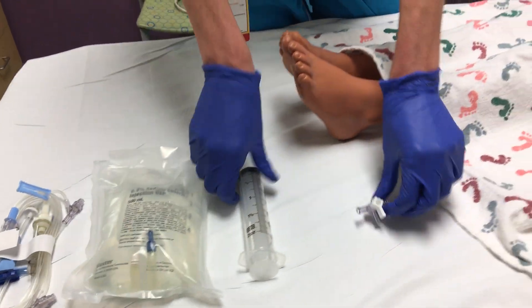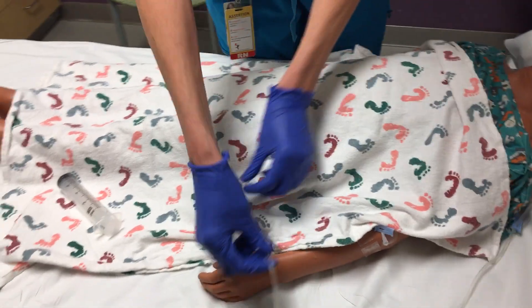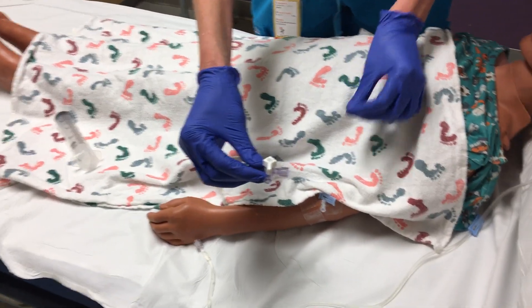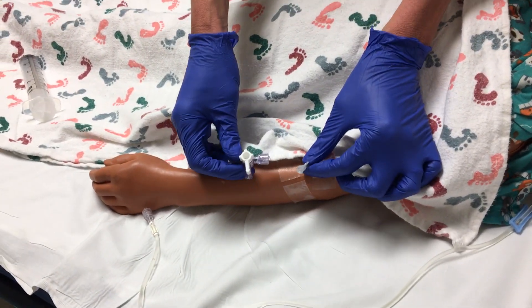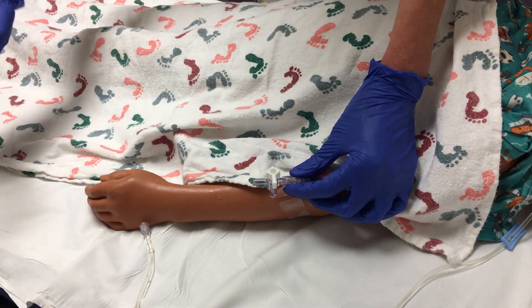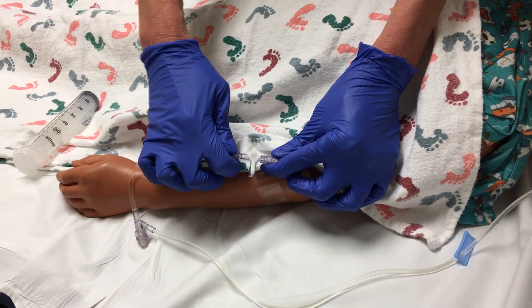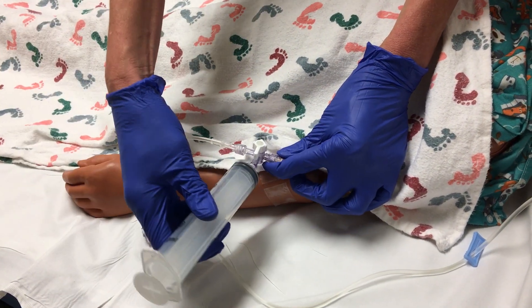I'm going to show you how to hook this up. First you'll prime your tubing with your three-way stopcock — you can connect that directly to an extension set or your patient. The fluid gets connected on the other side and then your 60 cc syringe.